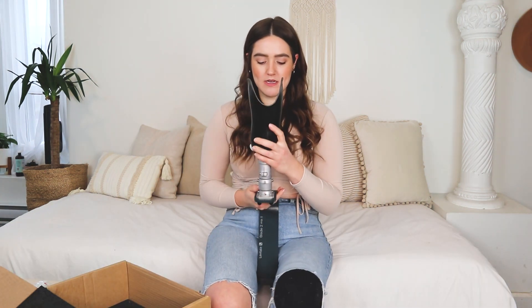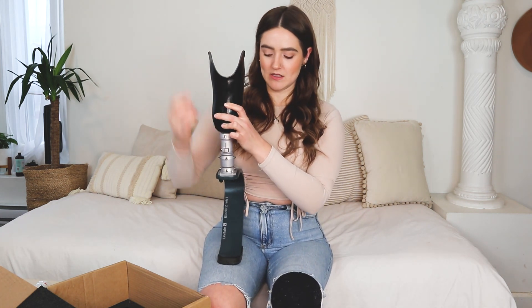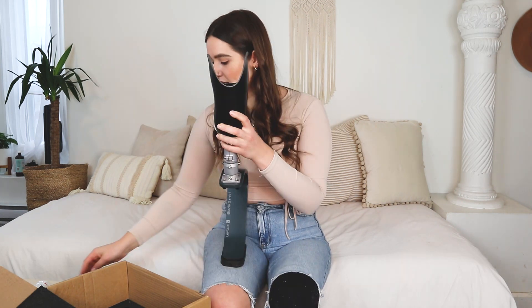If you're not sure how high you need your prosthetic foot, you can put this extendable piece into it — if you need to adjust it by just a few centimeters, even to like one and a half inches, it's totally doable. Rest that right on top. Be sure that the knee is aligned where the foot is facing forward, then grab four more bolts, put them into the holes, and tighten.